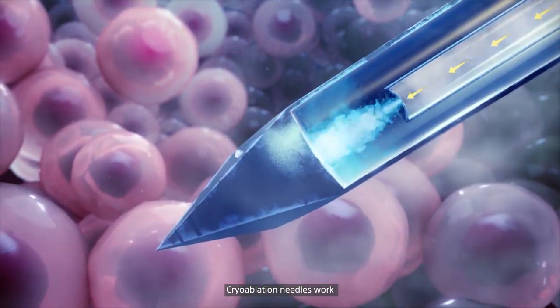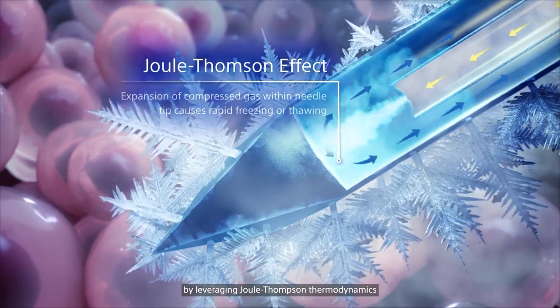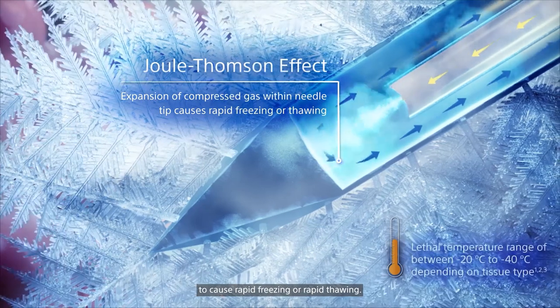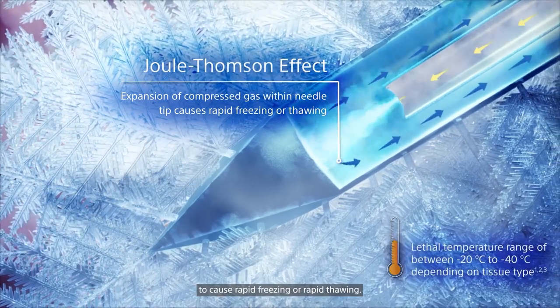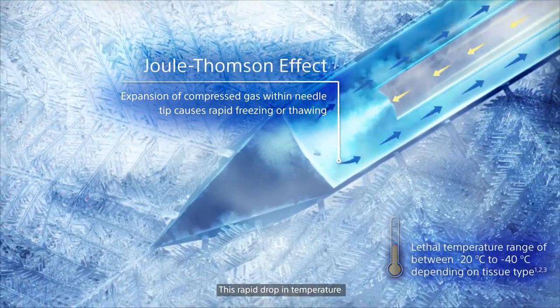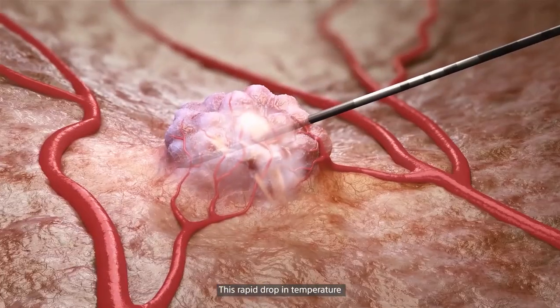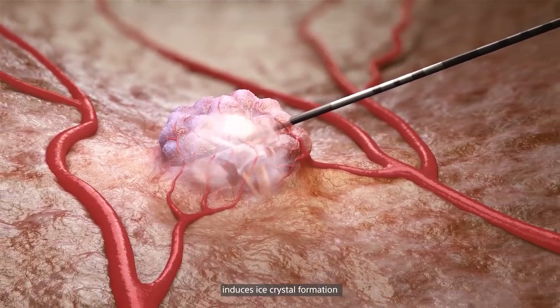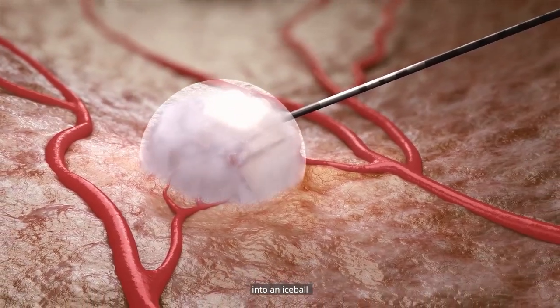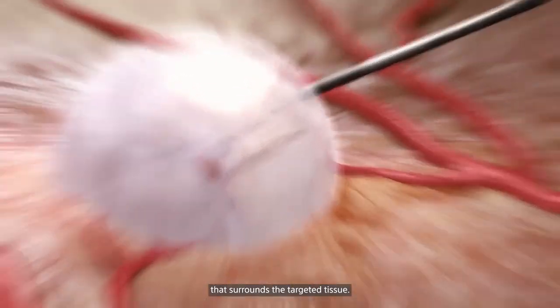Cryoablation needles work by leveraging Joule-Thomson thermodynamics to cause rapid freezing or rapid thawing. This rapid drop in temperature induces ice crystal formation into an ice ball that surrounds the targeted tissue.